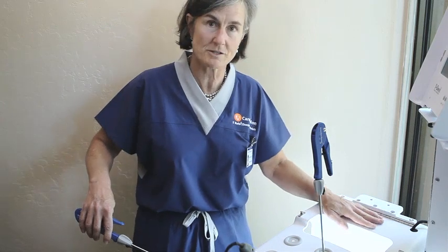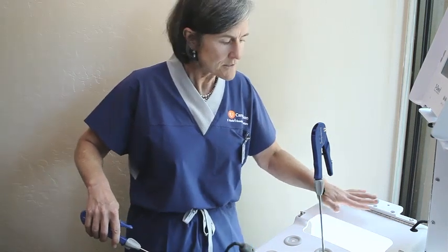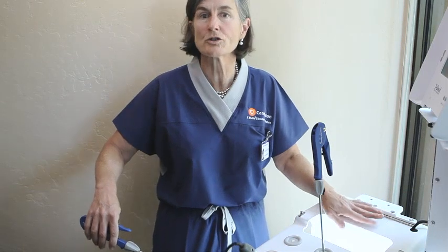We use the pelvic trainer and not the time in the OR because there should not be a patient's life at stake while you're building your skills. This is a low pressure scenario in which learning is maximum and optimal.